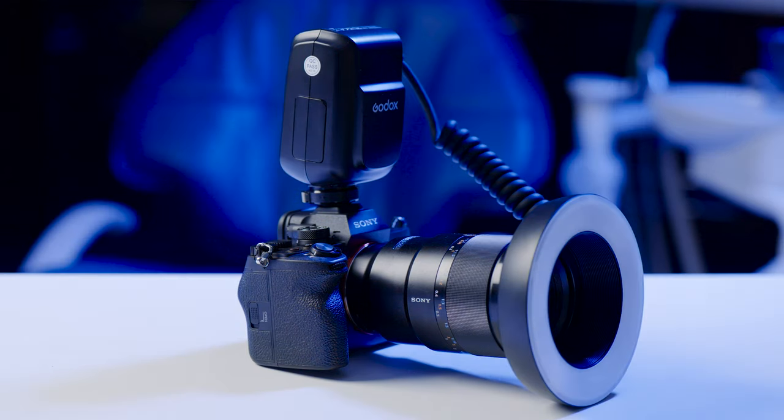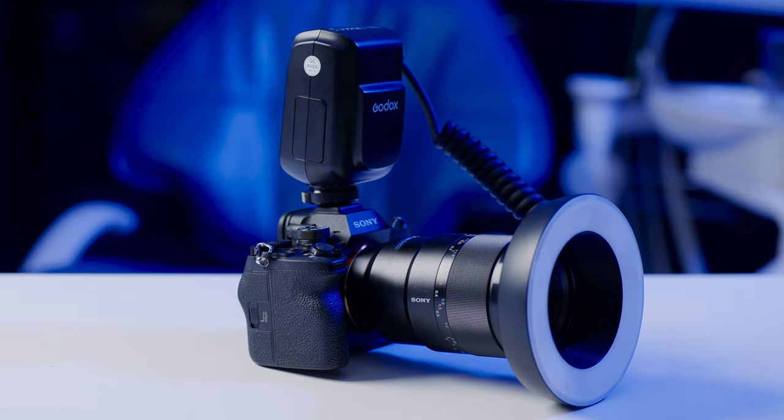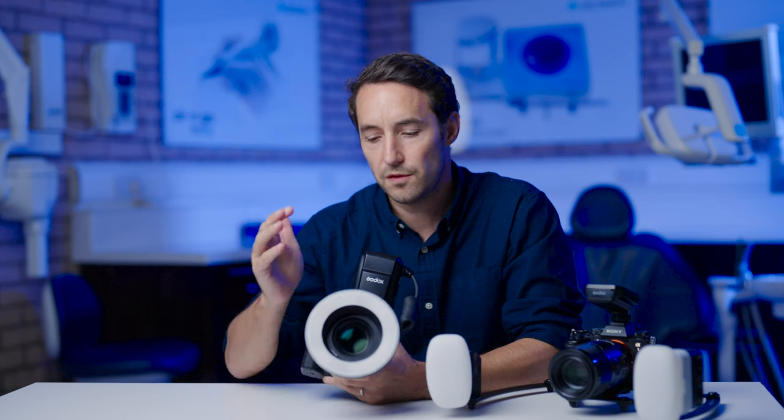So what do soft boxes actually do, and when would you need control over light angle? Light angle affects shadow — the closer the light is to the lens barrel, the less shadow will be created and the more even the illumination. A ring flash is therefore ideal for dental photography within the oral cavity due to its close proximity to the lens barrel.